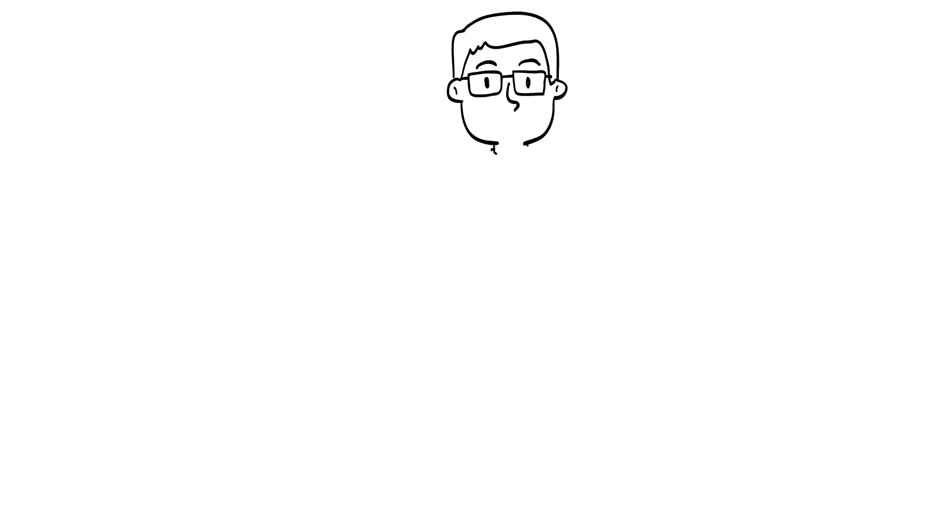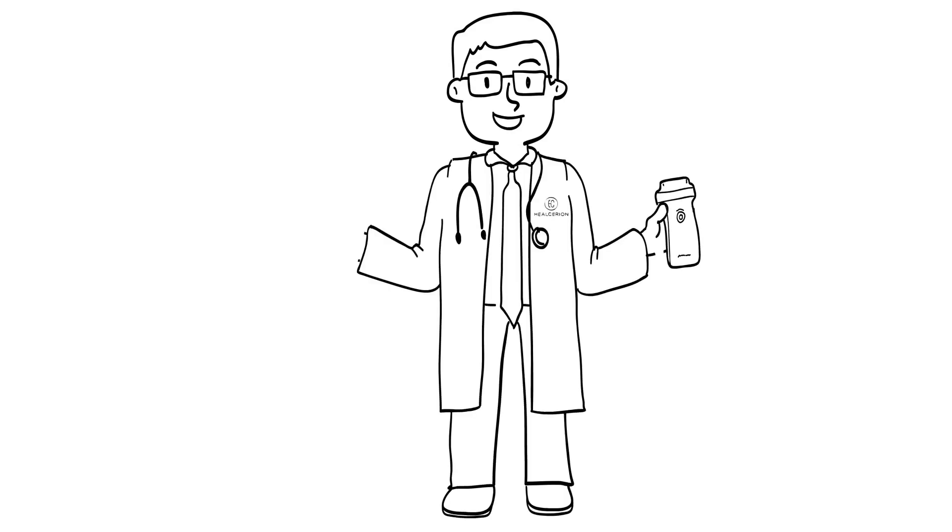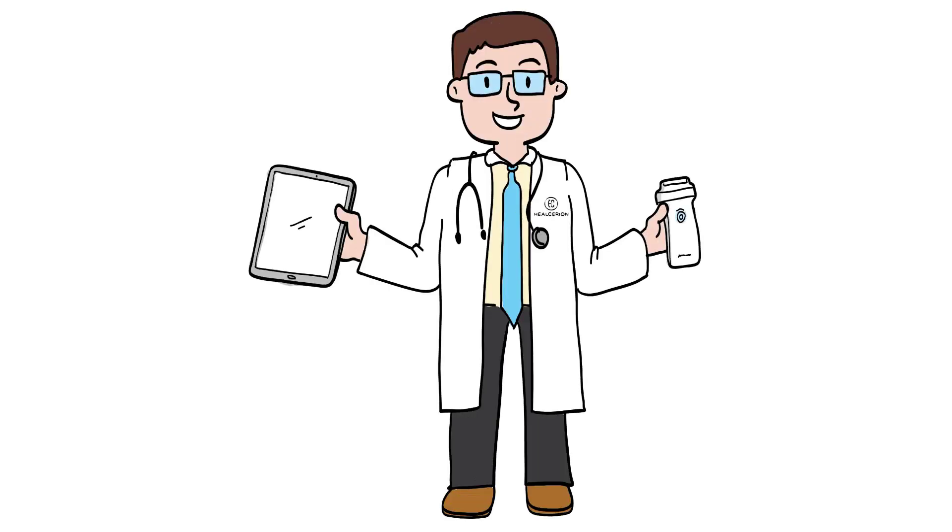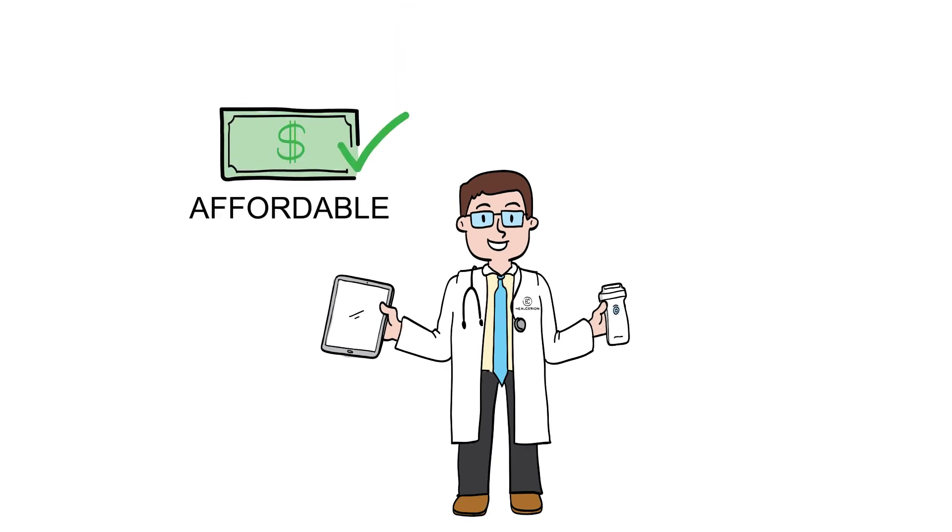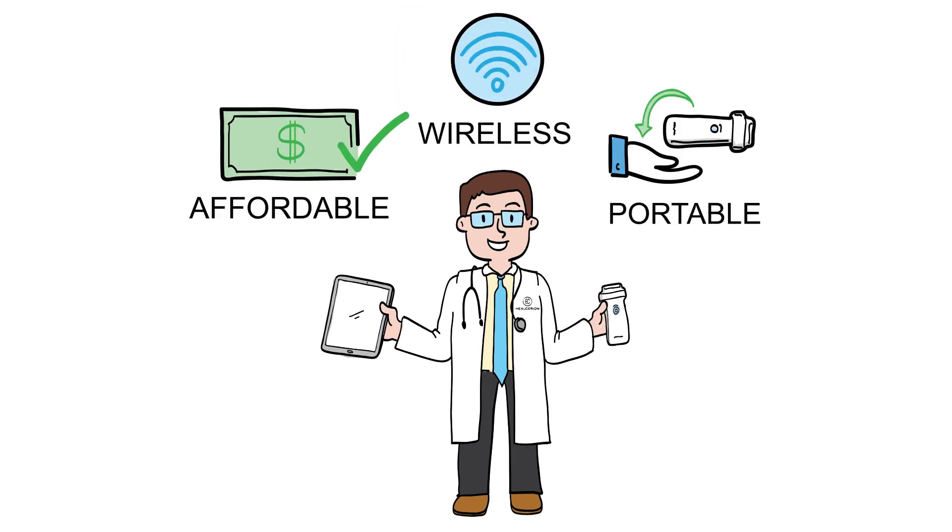With Sonon, primary care physicians can improve and expand their health care offerings. Sonon is affordable, wireless, and portable, so it moves wherever you move and goes wherever you go.